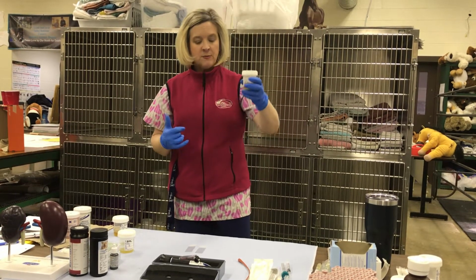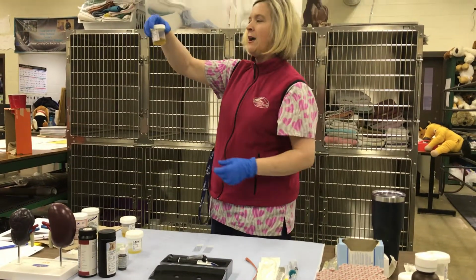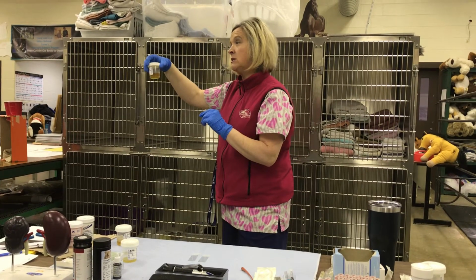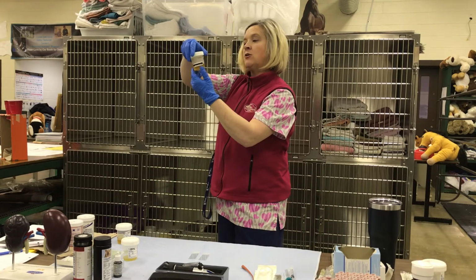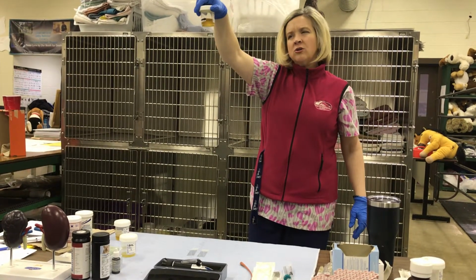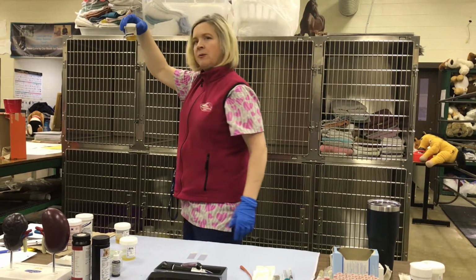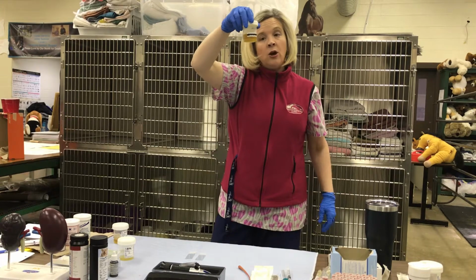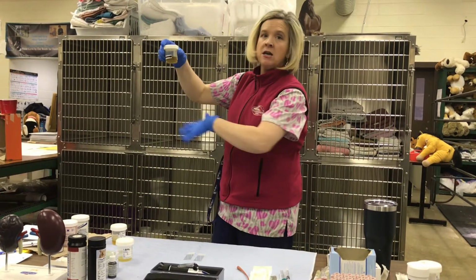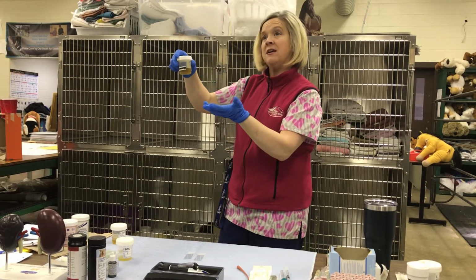So, for demonstration purposes today, we're going to start off by doing a visual observation of the urine. So this is important. When we look at Corny's urine, her urine is very gold, dark gold in color, okay? It's got a little bit of cloudiness to it. So that's going to be the turbidity. We're looking at the clarity, how clear it is, and we're also looking at how cloudy it is. That's going to be the turbidity of it.